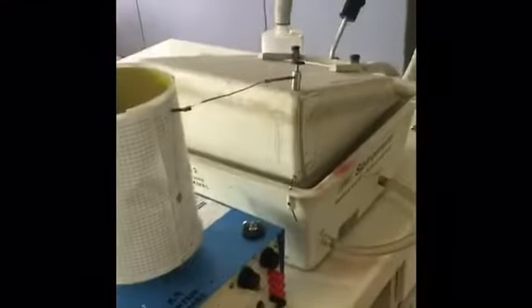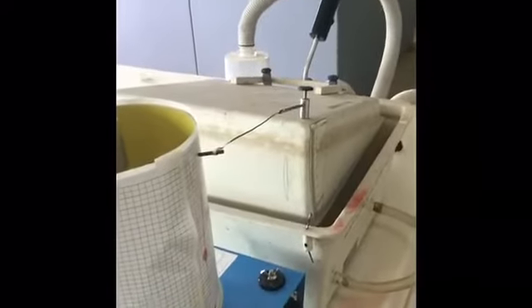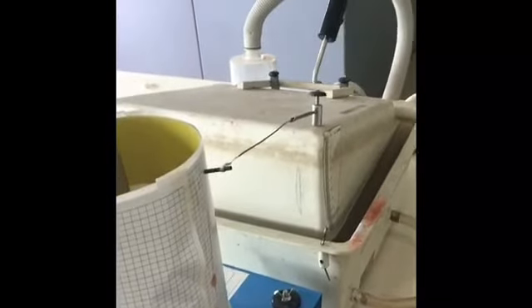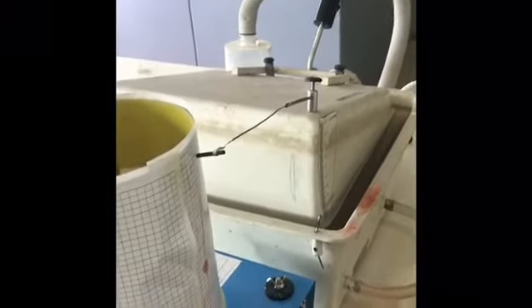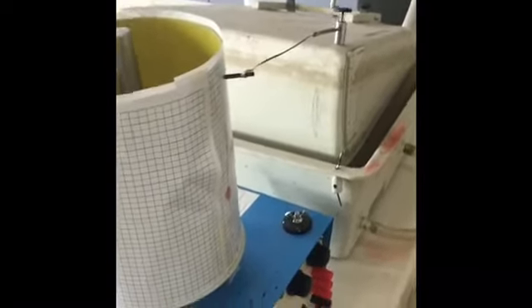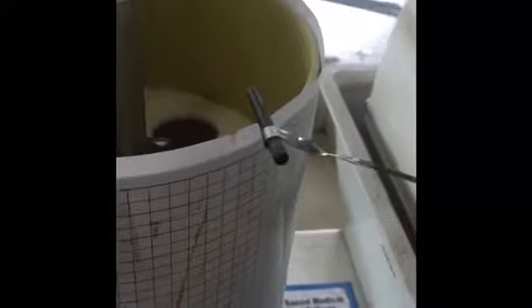We also have a nasal clamp. This is the whole wet spirometer. What is spirometry? It is a process of measuring the volume of air that moves into and out of the respiratory system. The apparatus required for this experiment is: wet spirometer, mouthpiece, nasal clamp, kymograph drum with paper, and a pen with red color ink.